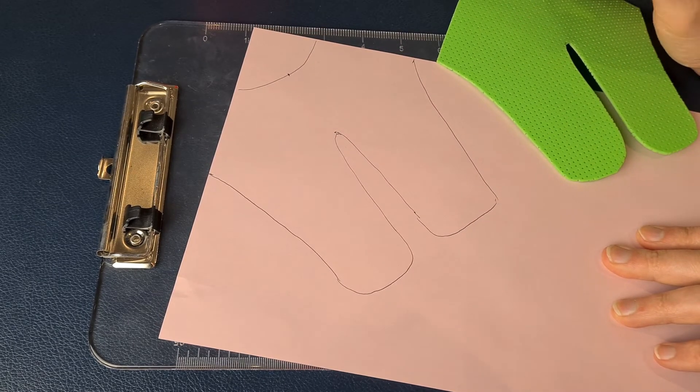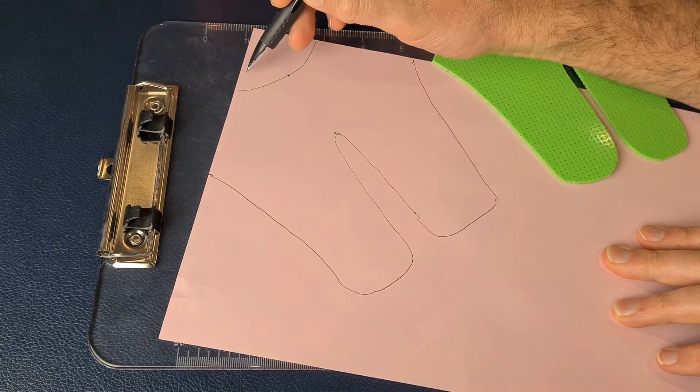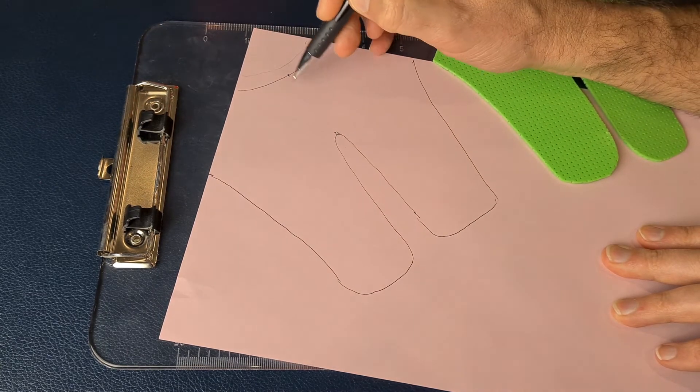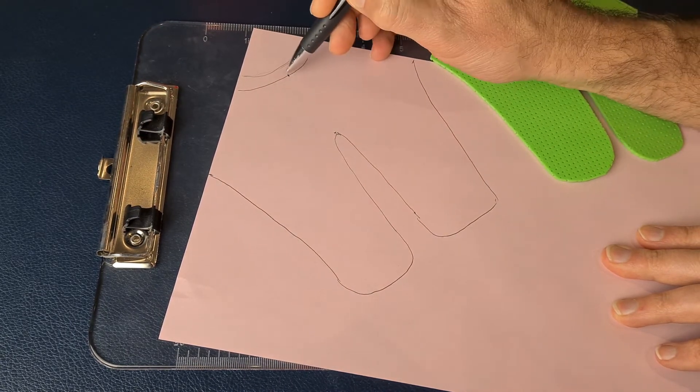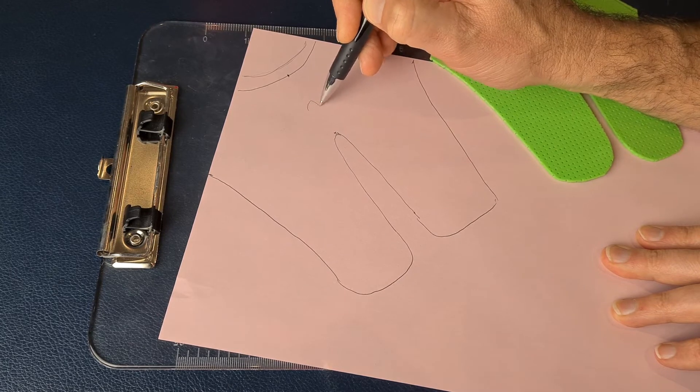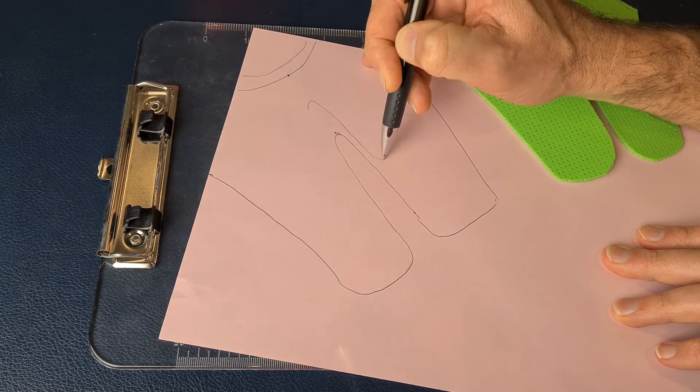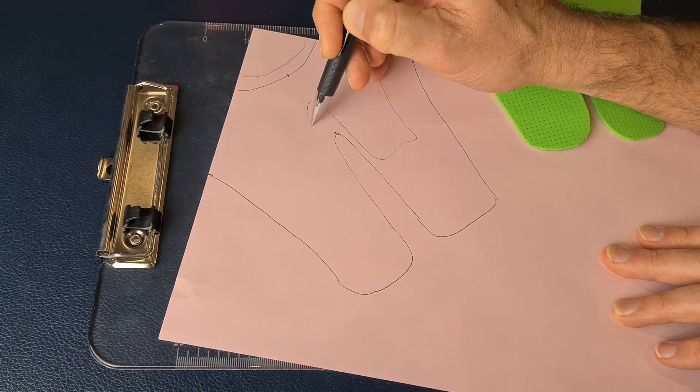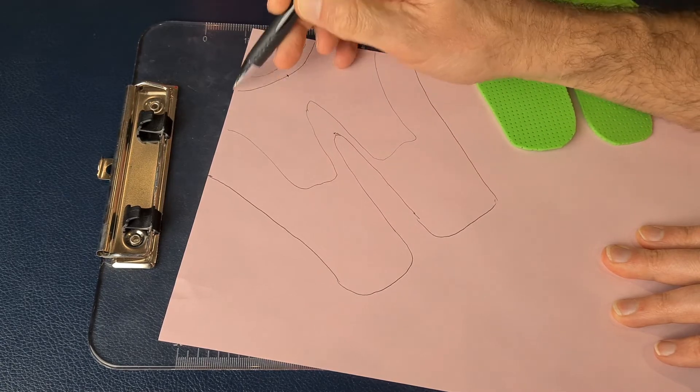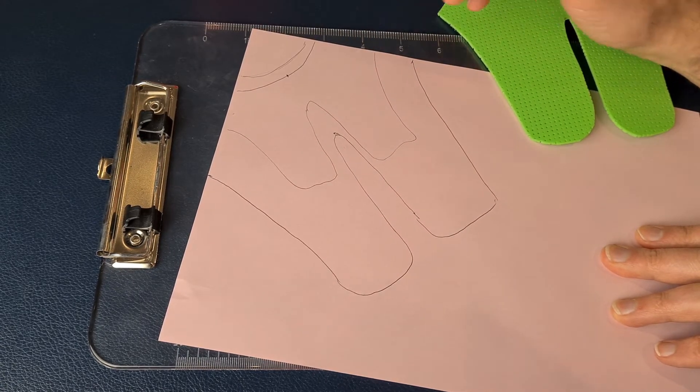If it's a smaller hand, then you're going to start with a smaller IP joint—you know, a small little IP joint here, a small web space, and some small measurements like that.